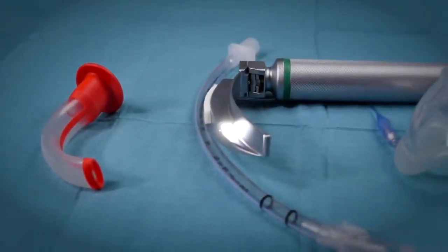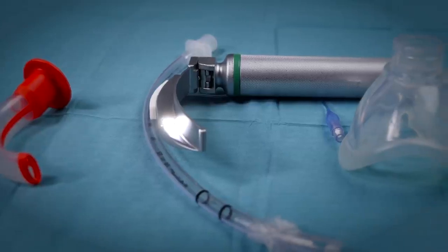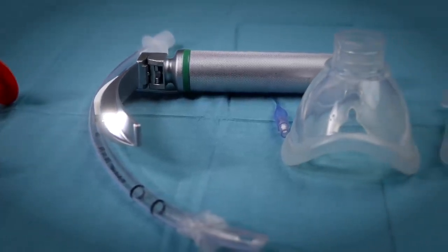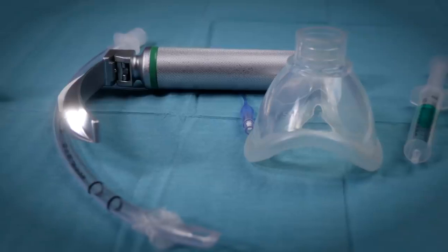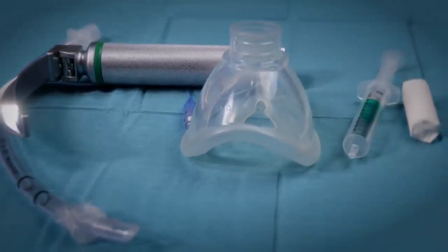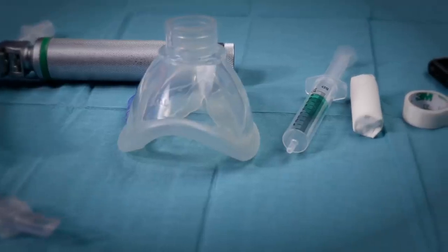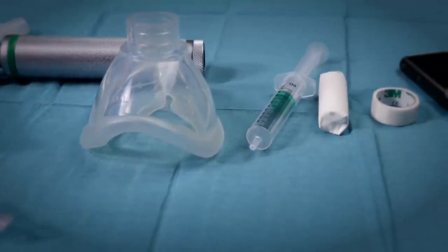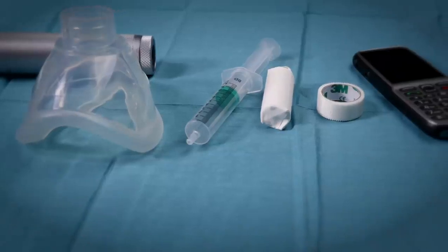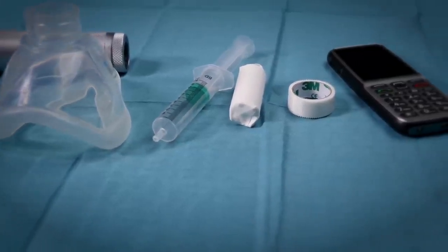Endotracheal intubation is an important part of airway management. It is best learnt through practice under expert supervision — in our opinion first on a mannequin and then on elective, uncomplicated and fasted patients. This lesson aims to prepare you for these practice sessions, and our narrow focus is teaching the manual skills that will increase your chances of success.